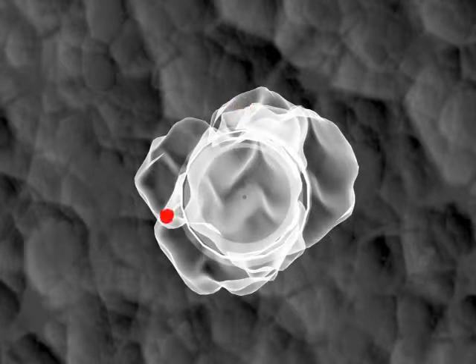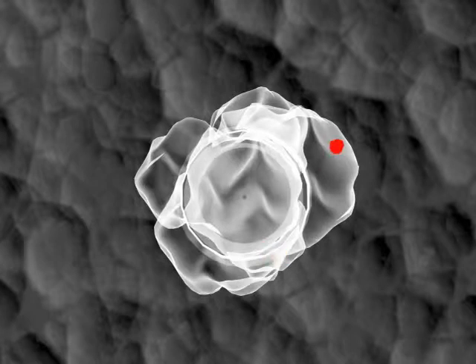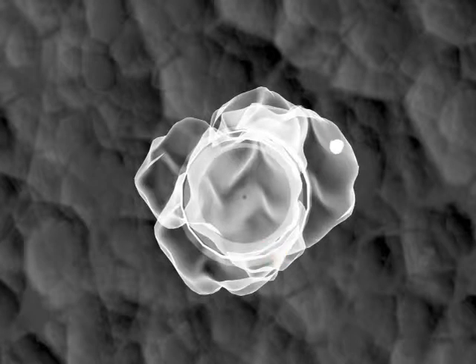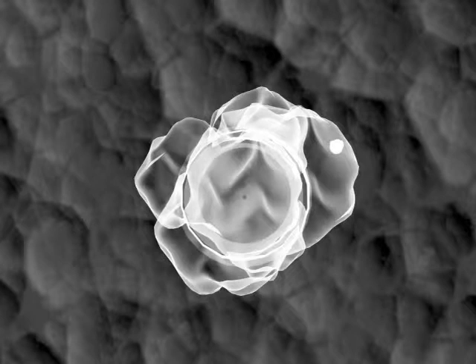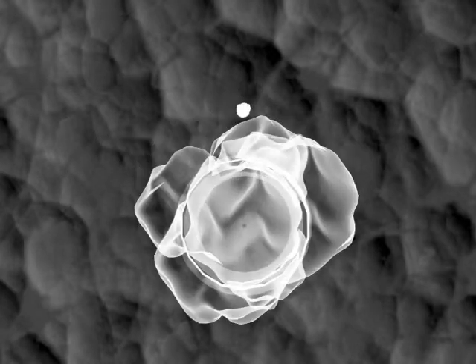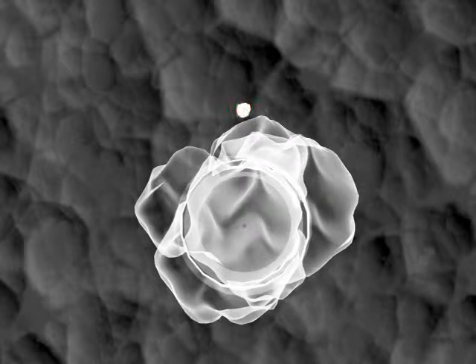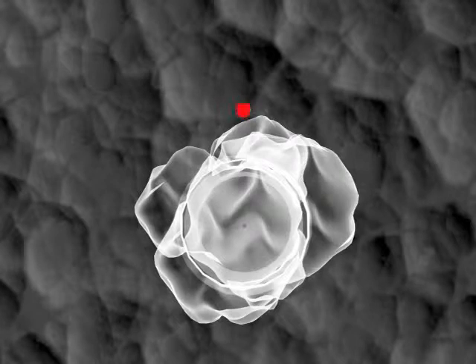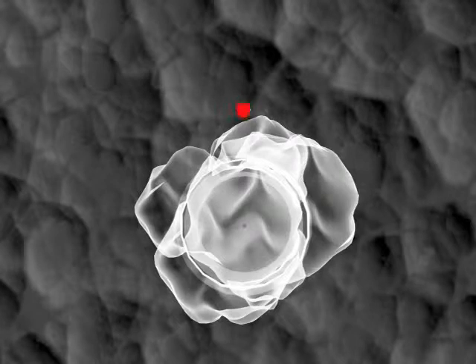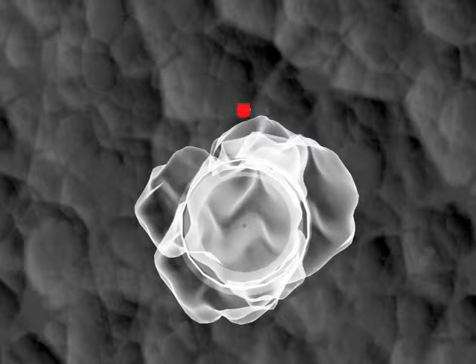This could require performing multiple cores in a full 360-degree arc in order to assure sampling. We have found that targeting next to a lesion instead of directly targeting a small lesion can be beneficial, allowing you to still visualize a small abnormality relative to the needle. Here in this animation, you can see how targeting a small distance away — maybe 5 mm or so — you can avoid this problem.